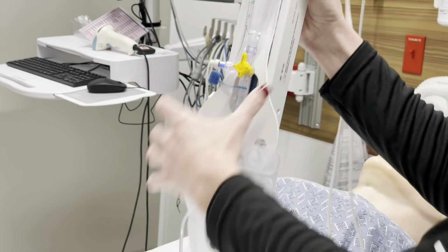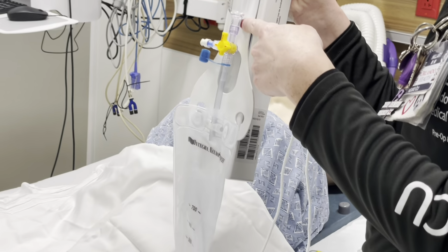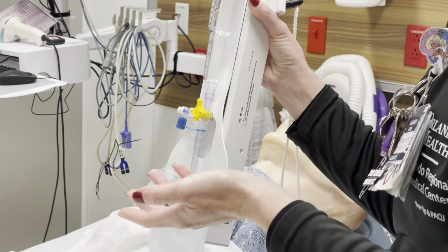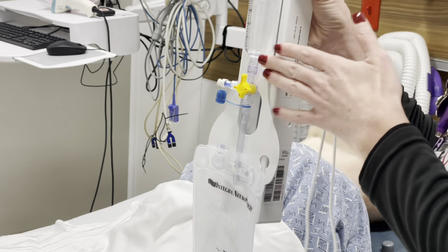You also want to check in your bag here, because when you go to prime your drain, it's going to be important. Sometimes they'll have fluid in this collection chamber. It could be CSF. It could be whatever they use to prime the tubing. It could be blood. So what you're going to do is empty it, make sure everything goes to the bag, and close it back and start fresh. So now you know what you've done.